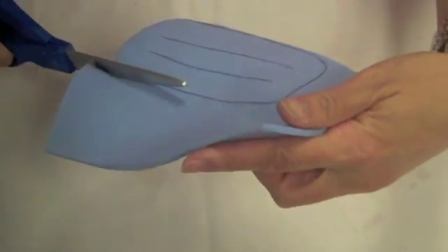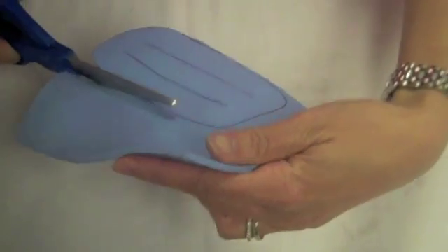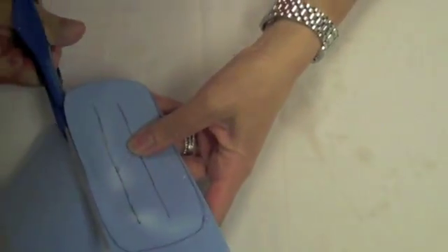Cut along the oval line, making sure to cut along the pen marks so that you are not left with any ink on the finished splint.